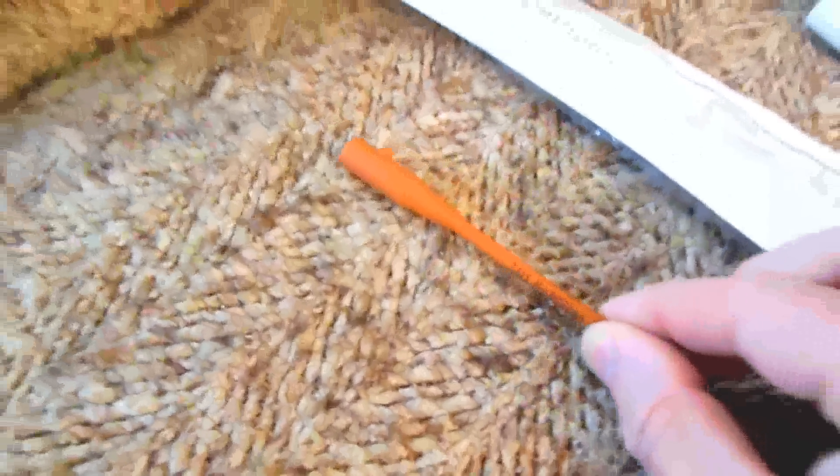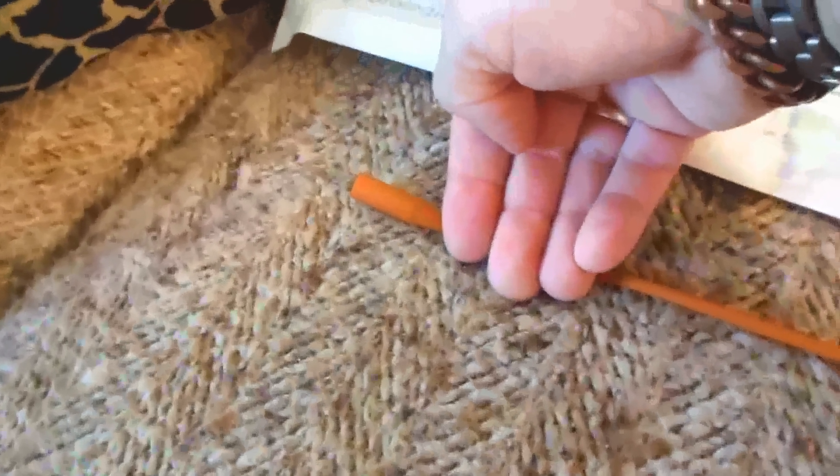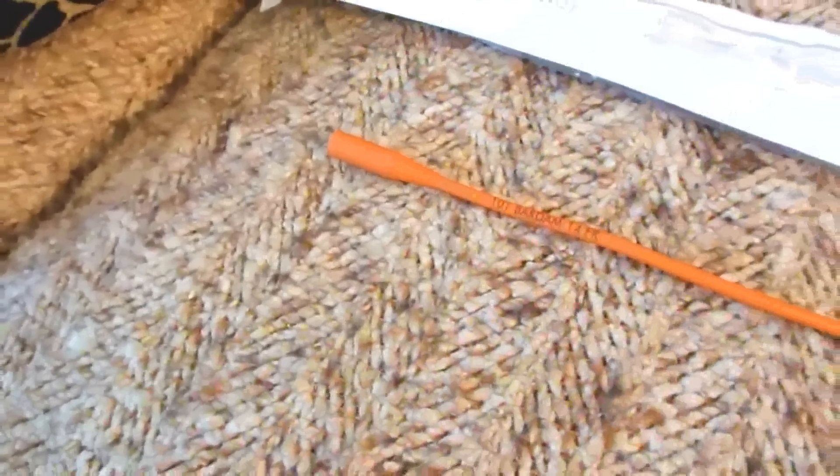When it's inserted, about the width of three fingers from the funnel end is all that will stick out — so it goes in a lot farther than you might think. You might feel like it's going in too far, but it's actually very simple.